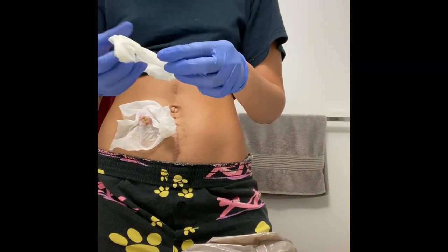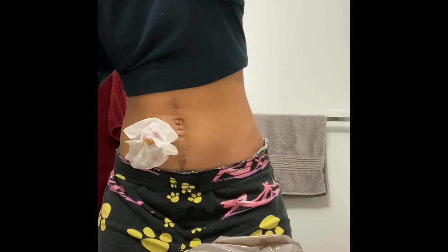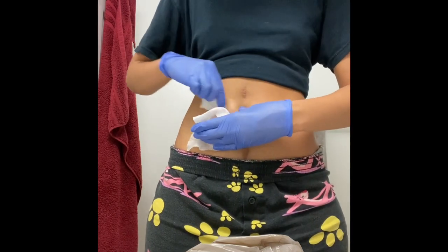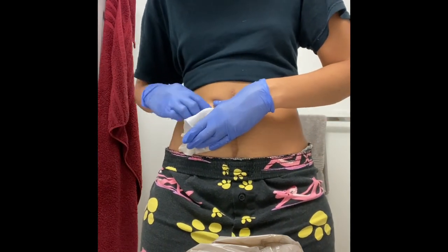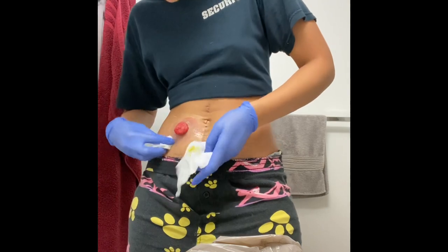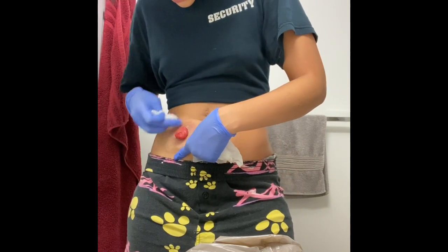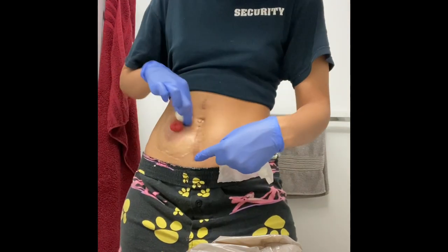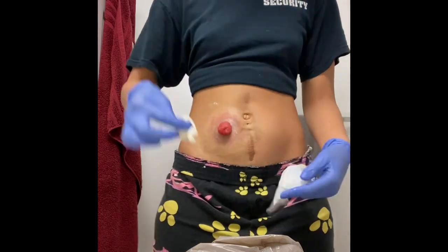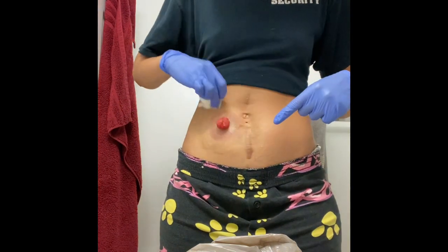I am going to repeat the process, securing Bert in a warm paper towel just in case he decides to poop. I'm also going to create another lather with unscented soap to ensure I'm removing as much adhesive as possible. Adhesive remover wipes are also a great alternative — I've just run out of them. Using this method and my fingers to peel off the excess adhesive has been working, and it's also let me itch the skin that's been under there.